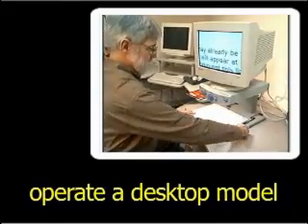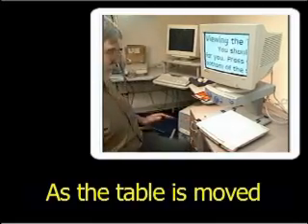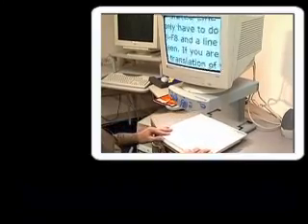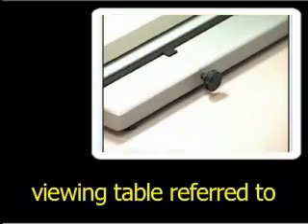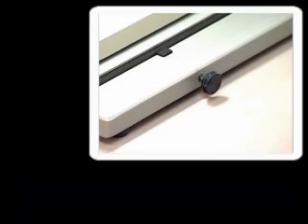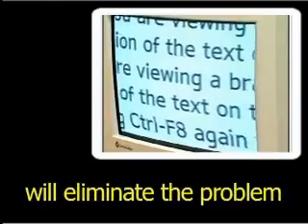Users first learning to operate a desktop model often have problems manipulating the viewing table. This user finds it difficult to keep the lines of text straight while moving the XY table. As the table is moved from right to left, the line of text may move up or down, seeming to blur or swiftly pass by. This movement can lead to a feeling of motion sickness and nausea. To counter this problem, better quality models have a control on the viewing table called a friction break — a knob at the center of the side of the viewing table closest to the user. Adjusting the friction break allows users to move the table left and right without accidentally moving it up and down at the same time, eliminating the problem of motion sickness in most cases.